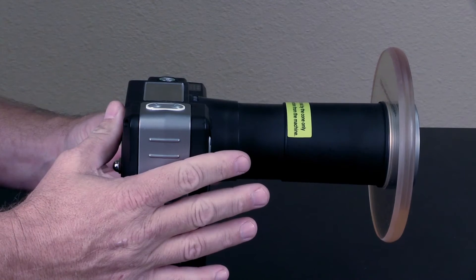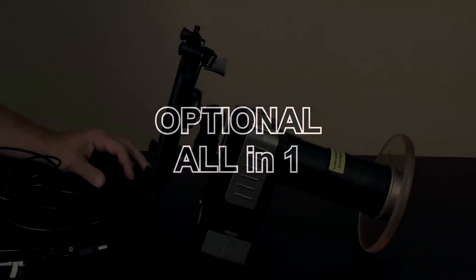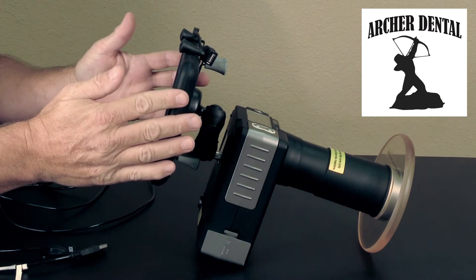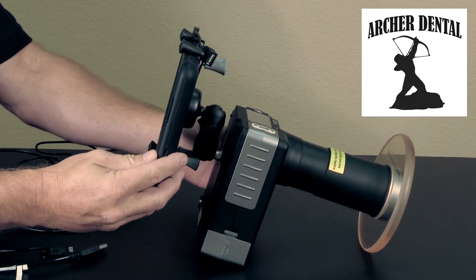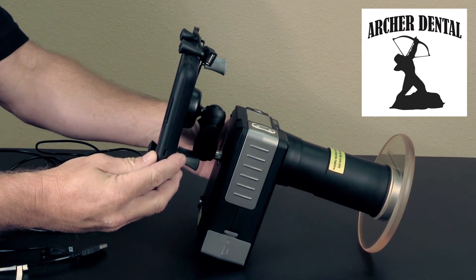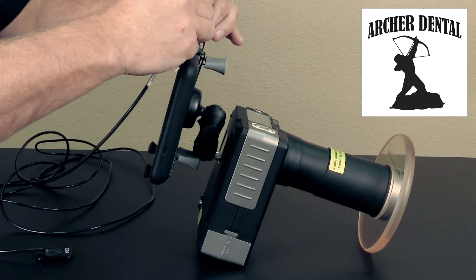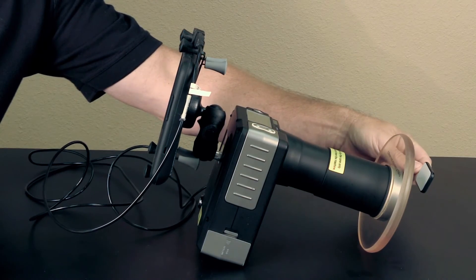The unit is ready to retake the next x-ray immediately. The Vector MaxRay is also available with a complete add-on computer screen called the All-in-One version. This system allows you to take images anywhere in the world, completely portable, up to 300 shots per single charge. Simply add your sensor, position it, and take your image.